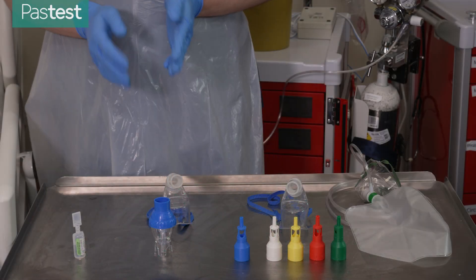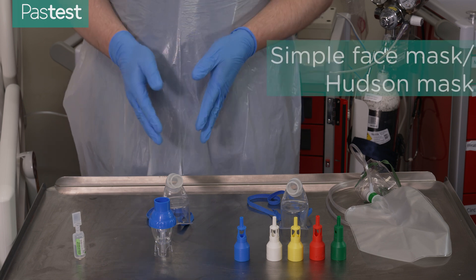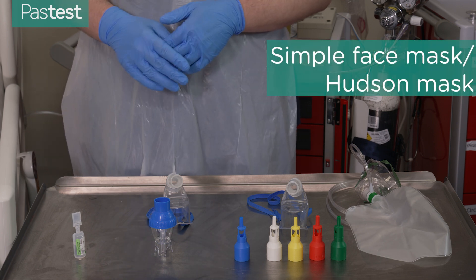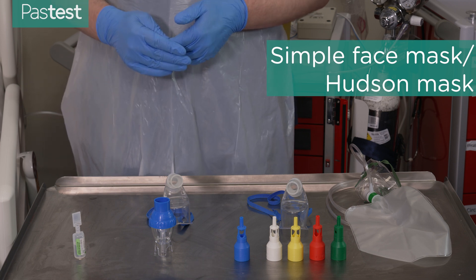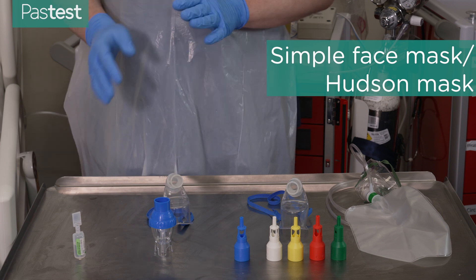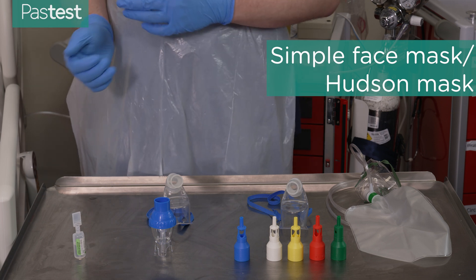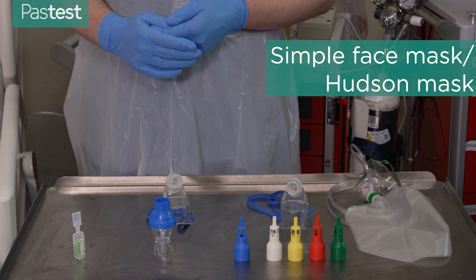The next oxygen delivery device is a simple mask, also known as a Hudson mask. This is used for patients who are slightly more hypoxic or more acutely unwell, because it can deliver oxygen concentrations between 30 and 40 percent at a flow rate of 5 to 10 litres per minute.